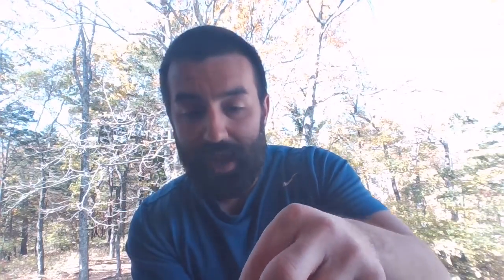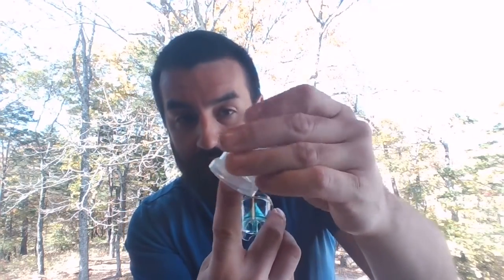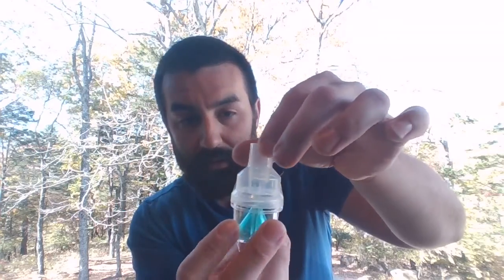I got my jet, this big plastic sleeve, but it doesn't actually have a baffle built into that. Okay, you're going to make sure that kind of clips down. The baffle right here is actually built into this top little lid on this nebulizer. Okay, so we're going to kind of thread that in.